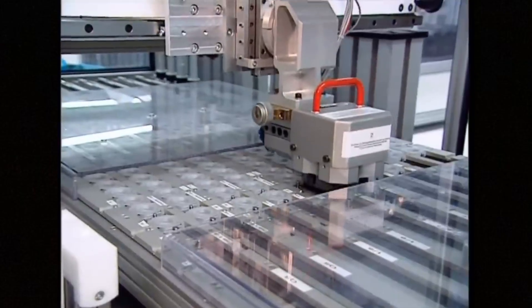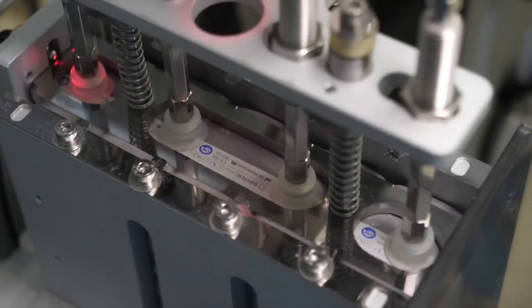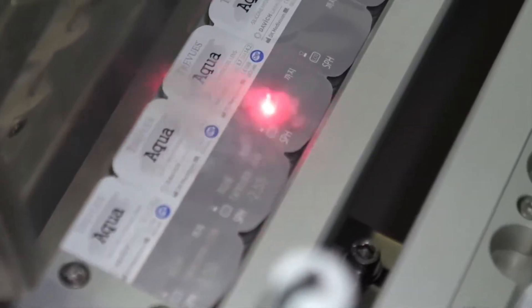While hard lenses are packaged without that saline solution, they're all secured in general packaging, and a laser may be used to add the unique details for the lenses' specifications.